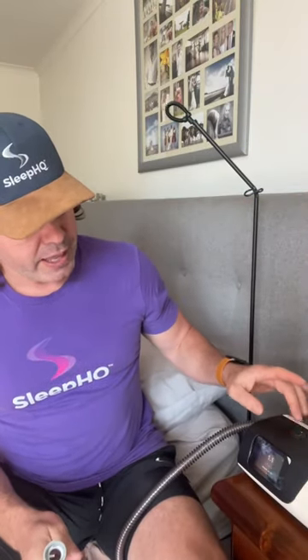Now if you're struggling to dry it out, what you can do is plug it into your AirSense 11, switch it on and switch it off. It has a feature designed to run airflow through the tubing after you switch it off for exactly that reason — to dry it out, to stop the mold and bacteria growing in that moist environment.